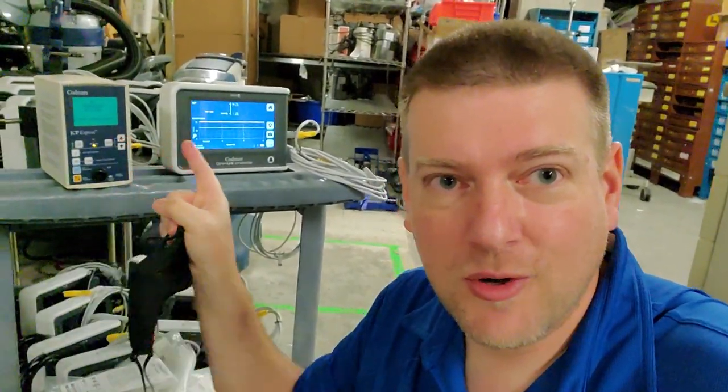Anyway, guys, just showing you the evolution of technology in medical. You've got the old tried and true and the new one.